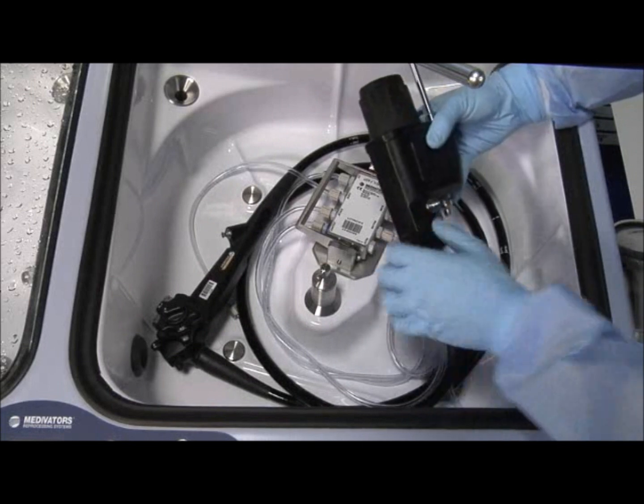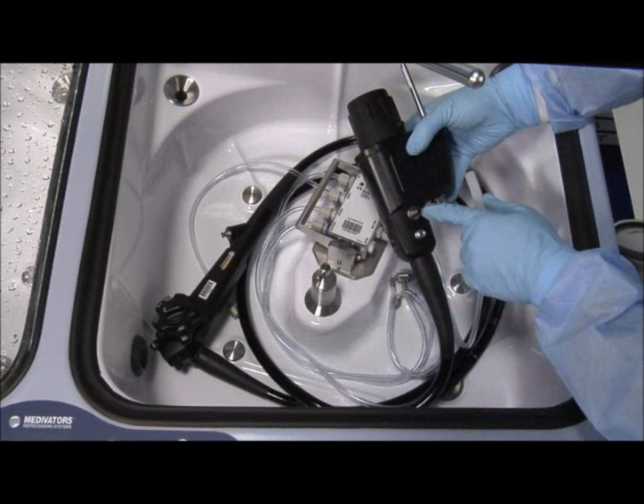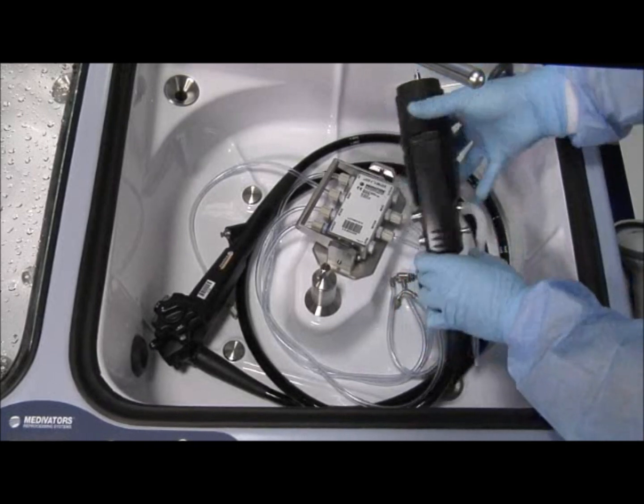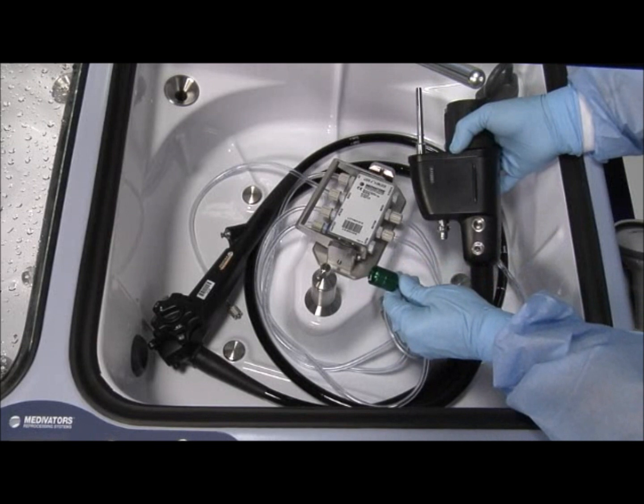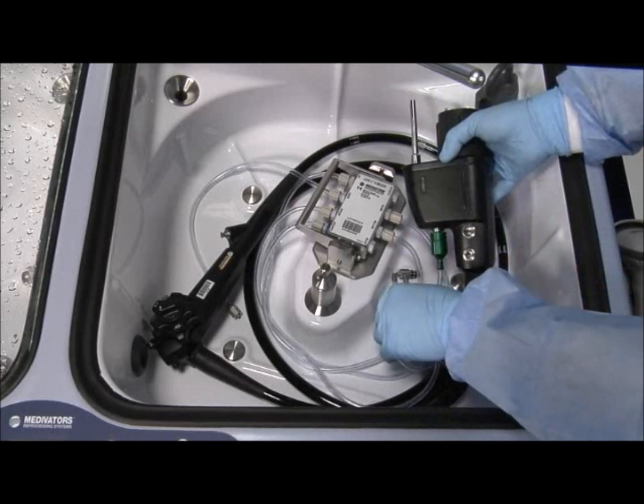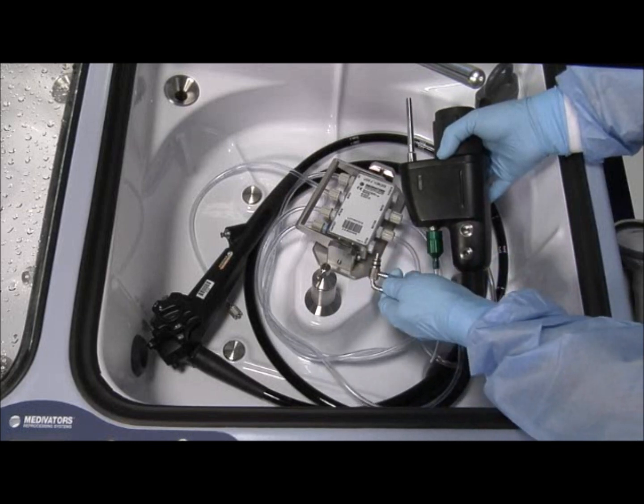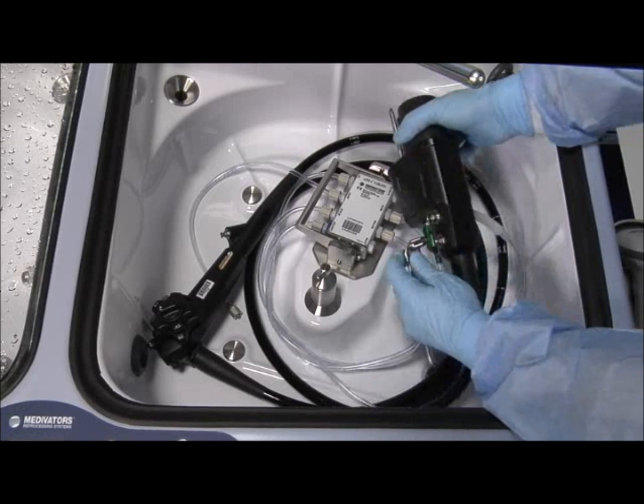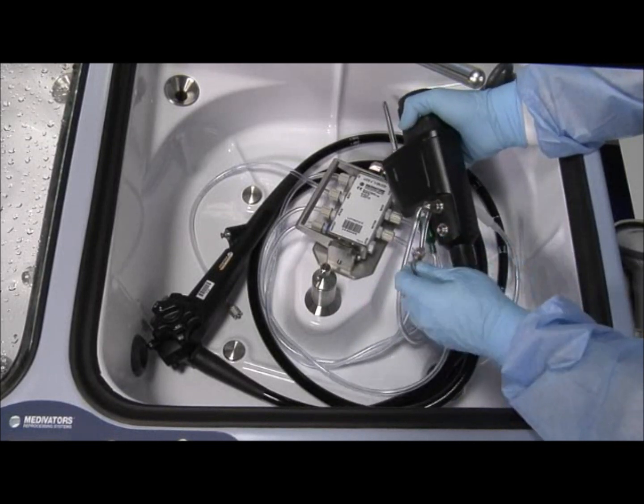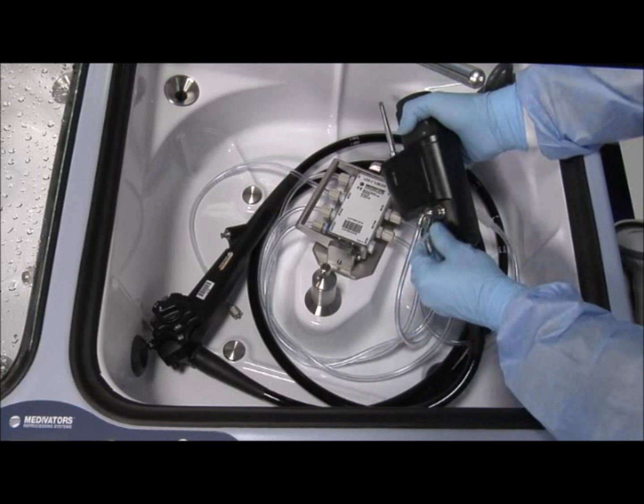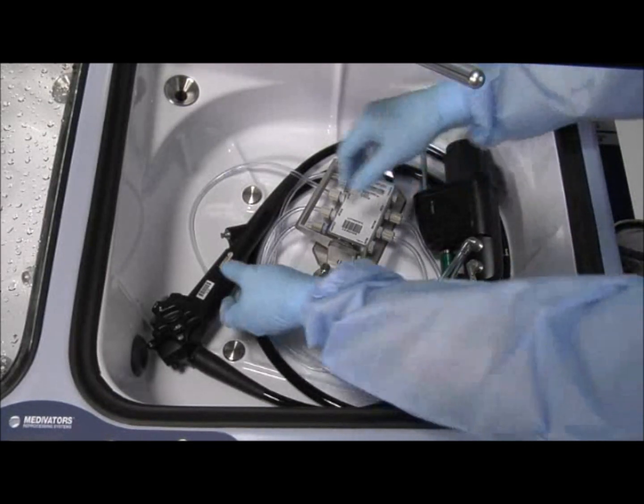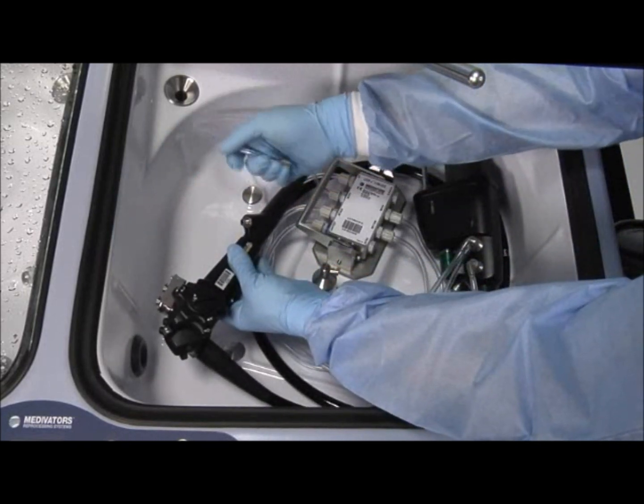Connect the suction connector to the suction port on the scope, and connect the biopsy connector to the biopsy port on the scope.